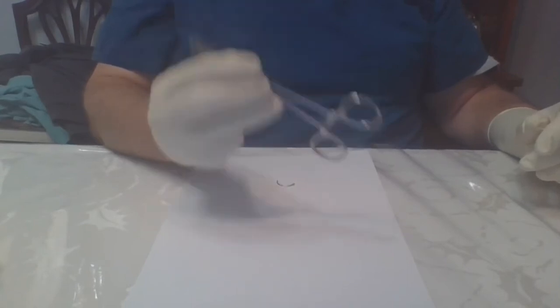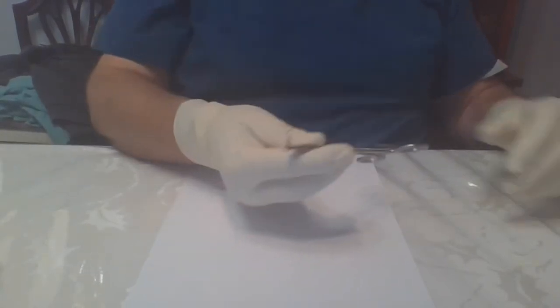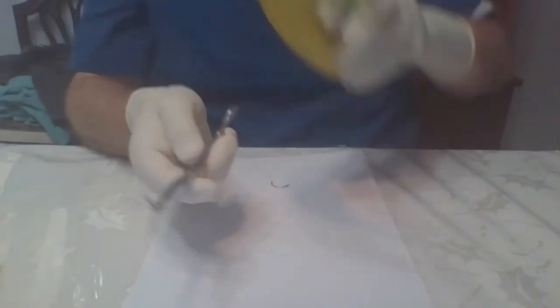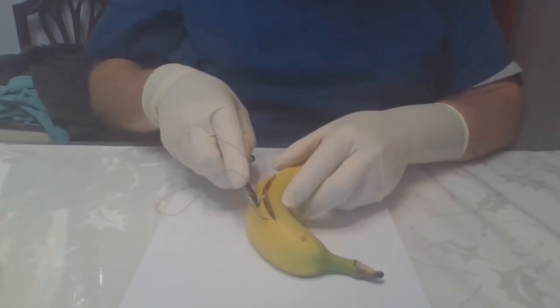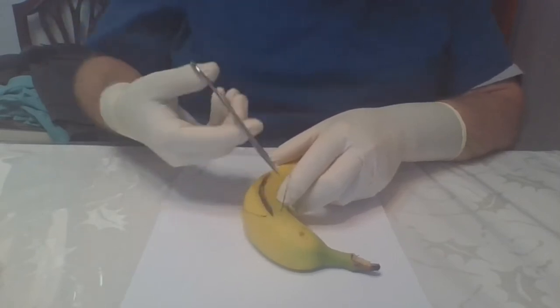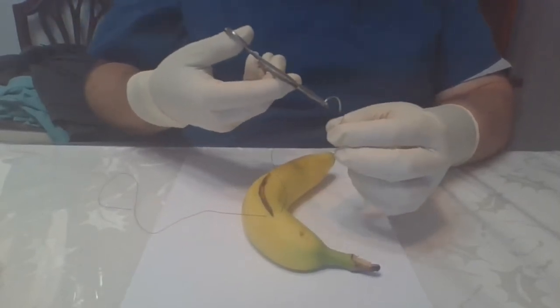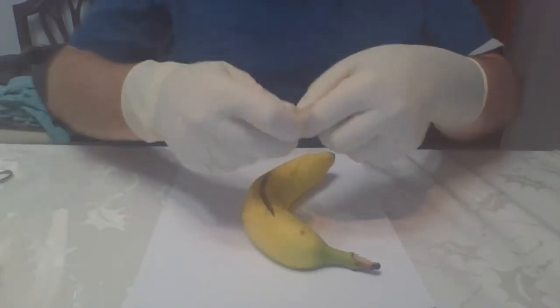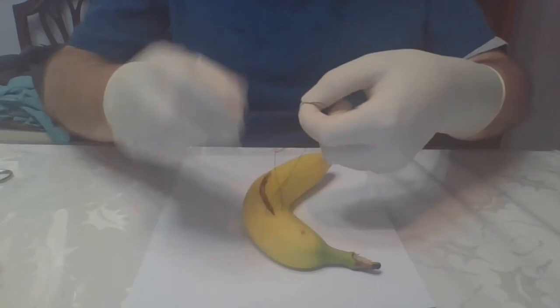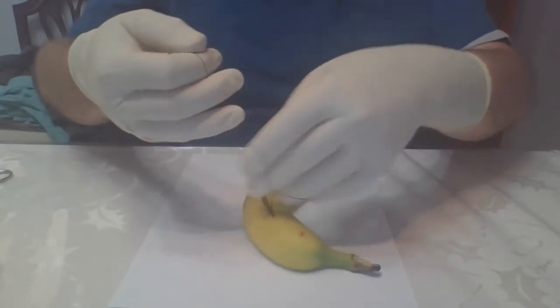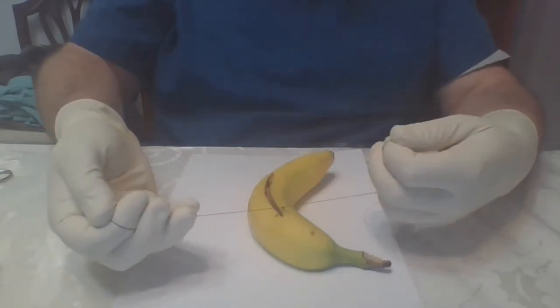You'll notice I usually grasp it with my thumb too right there, but it stays in really well. So you can use these to suture. And as you pull it through, so then that comes out. A banana or pig's feet are good to use.